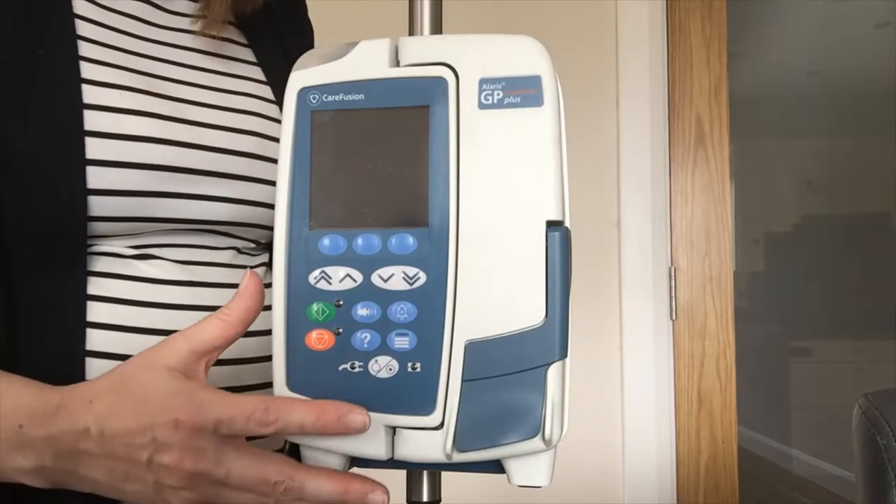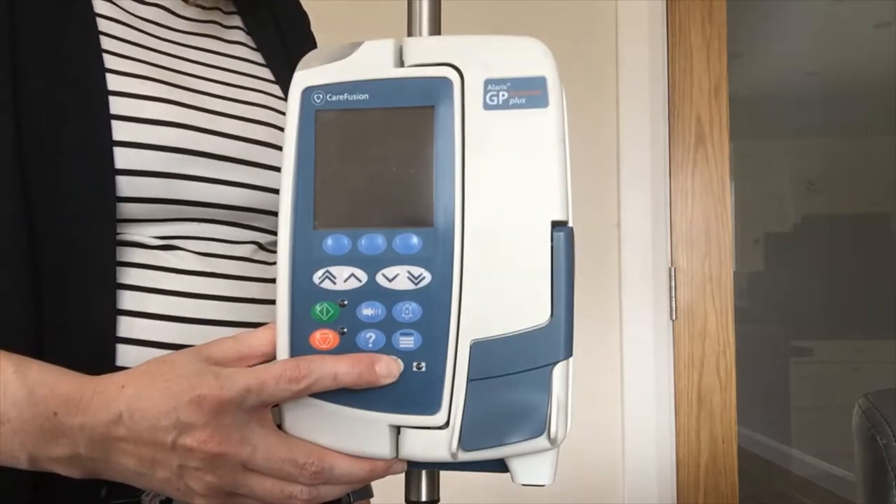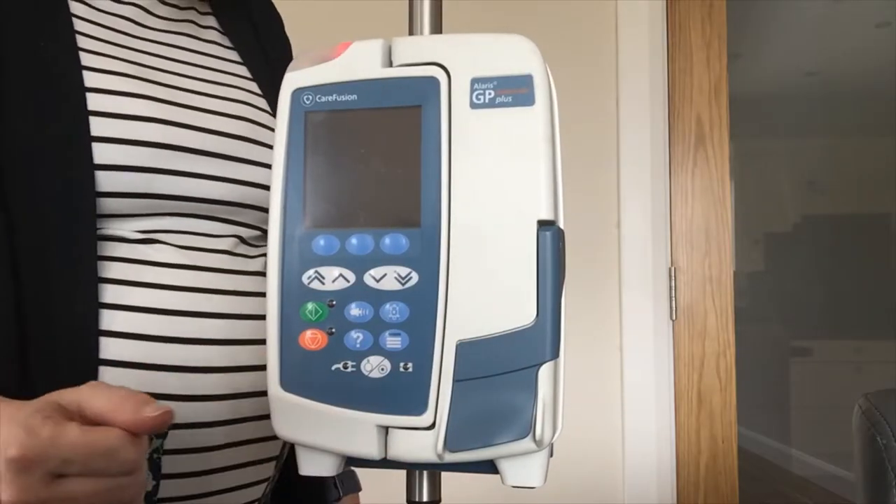Before our setup of the pump I am going to hold my power on and power off key — it is the white key at the bottom — so I am just going to press that once. You hear a little beep and your pump will start its setup.